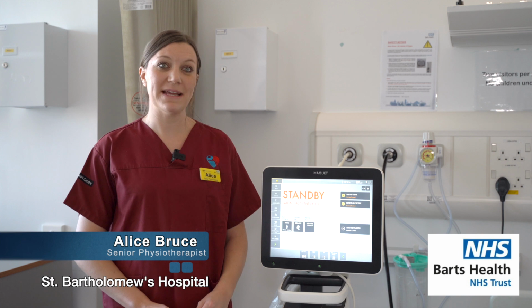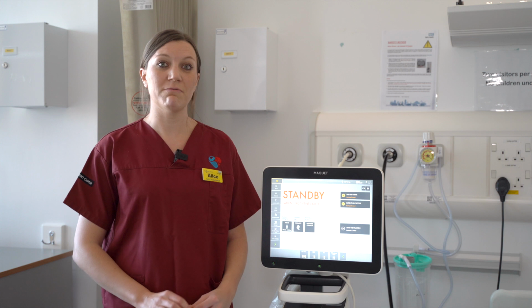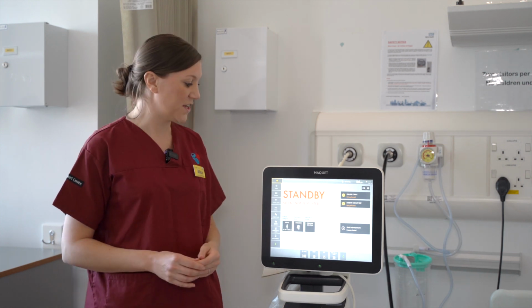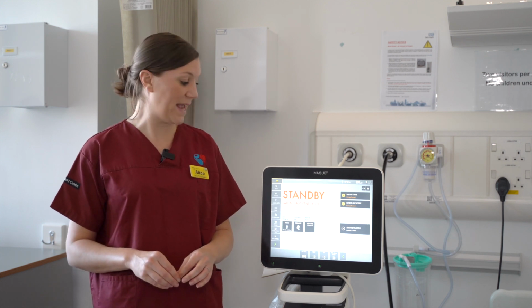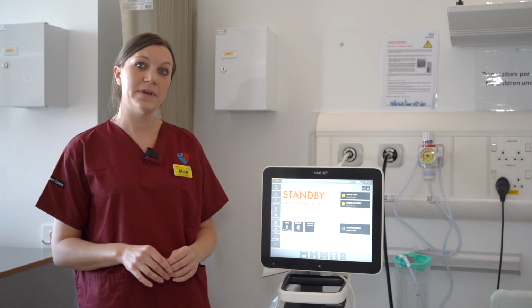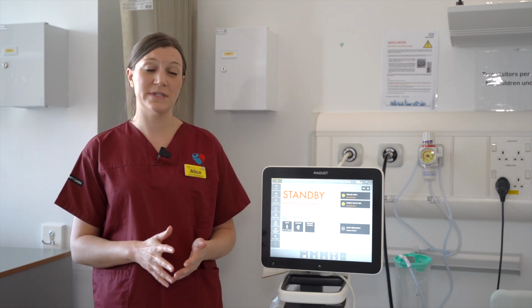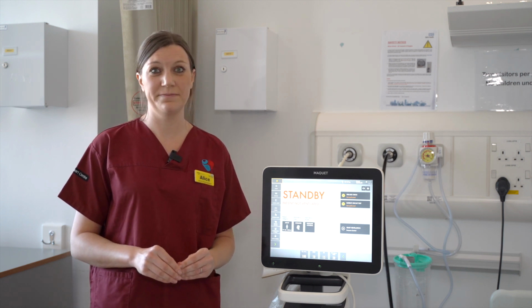This video is a basic introduction aimed at non-ITU doctors into respiratory assessment and mechanical ventilation in light of the current coronavirus pandemic. So the aims of this session are to discuss respiratory assessment in basic terms for the intubated patient, to introduce you to the ventilator circuit and a basic setup, to introduce you to the ventilators we have here and the basic settings and modes of ventilation, to discuss lung protective ventilation, and finally talk about general issues and things that can go wrong.